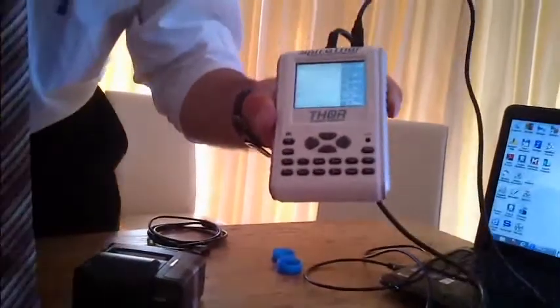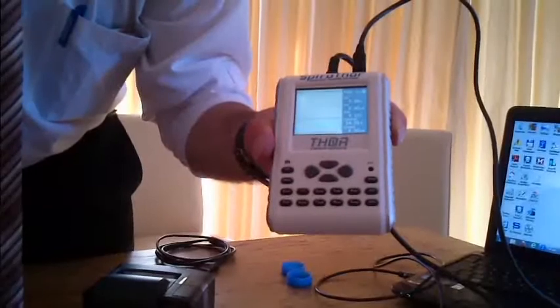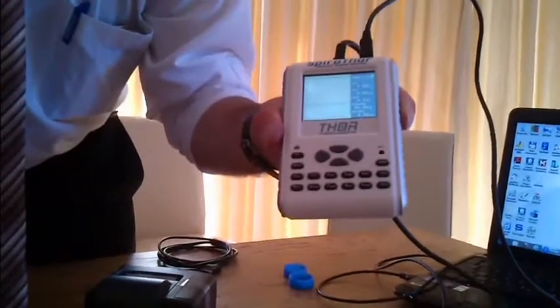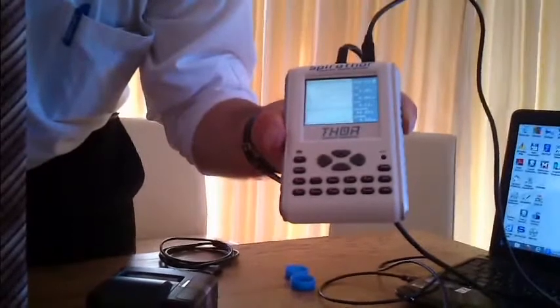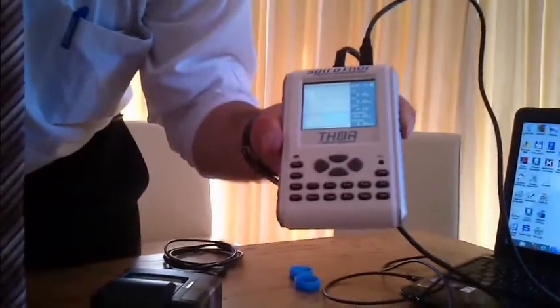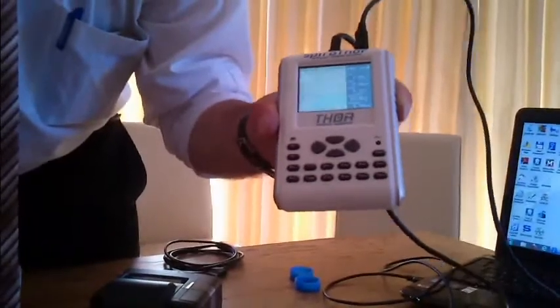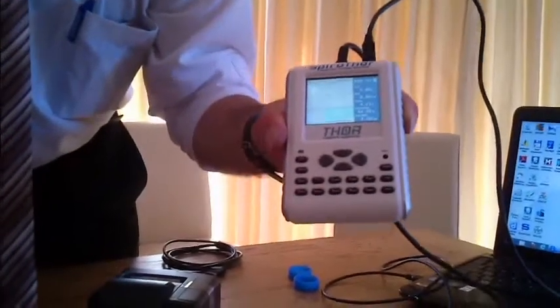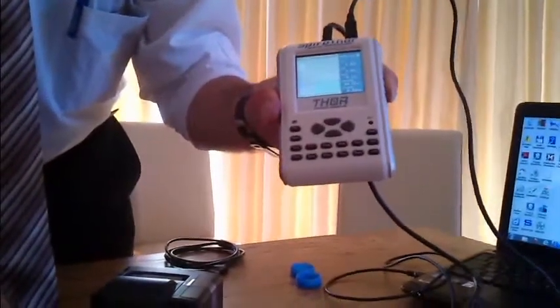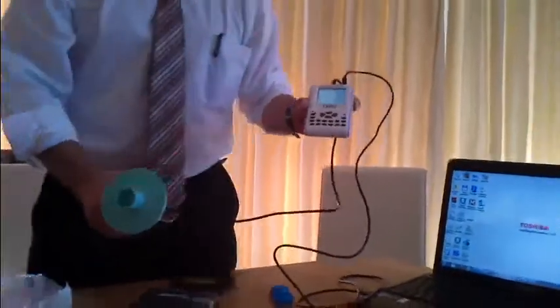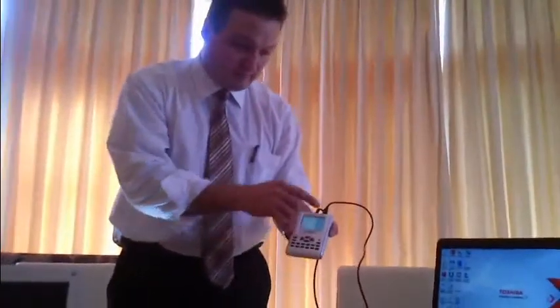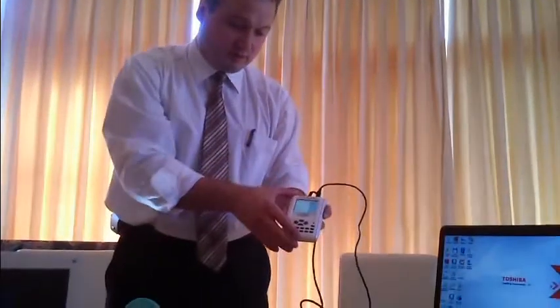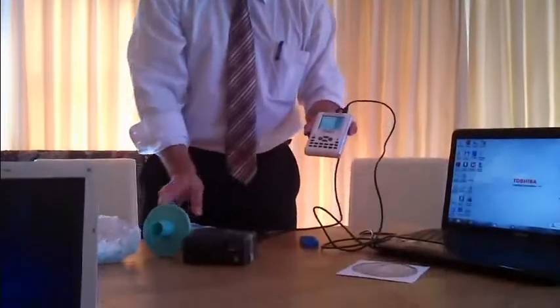There are much more complicated tests with the device that I'm not going to demonstrate now. Please consult the manual for that. Also pre and post measurements. The patient is basically taking a bronchodilator or any kind of drug, and you can do the efficiency measurement with this device of the efficiency of the drug. Please consult the manual for that. However, I'm going to demonstrate now how to transfer the data to a computer, how to synchronize the information, and how to print the results with a thermal printer.